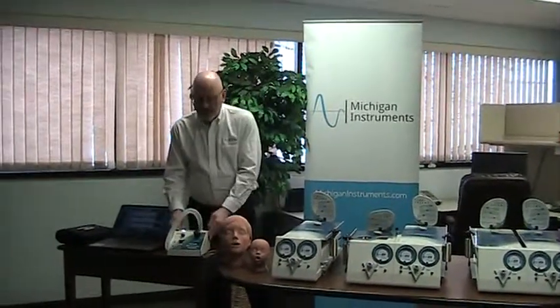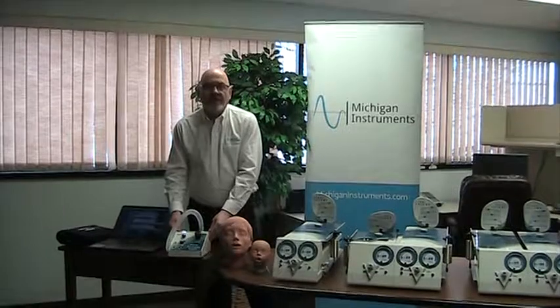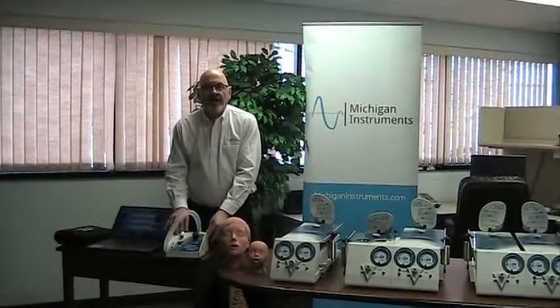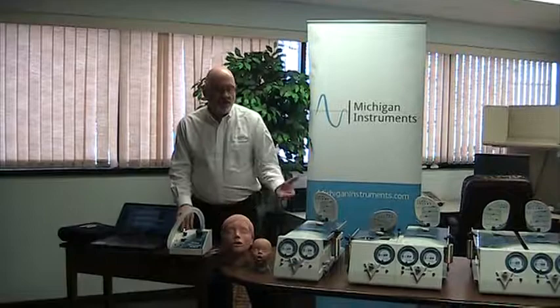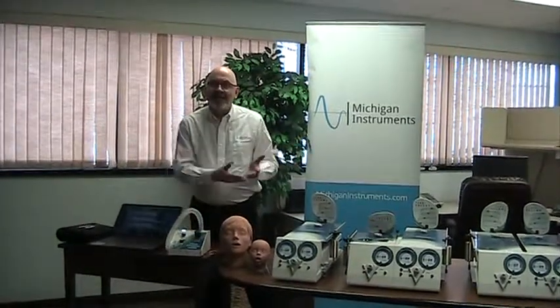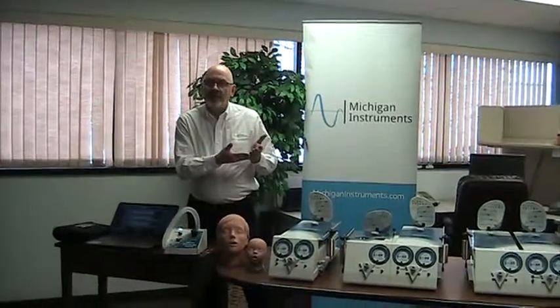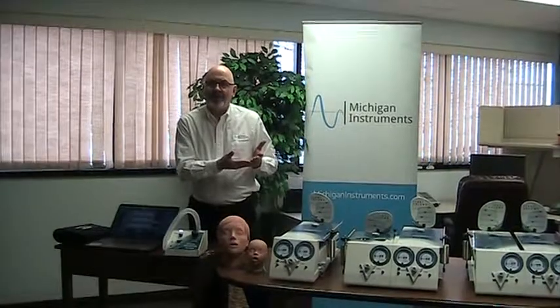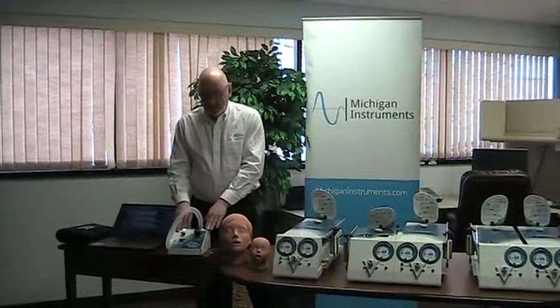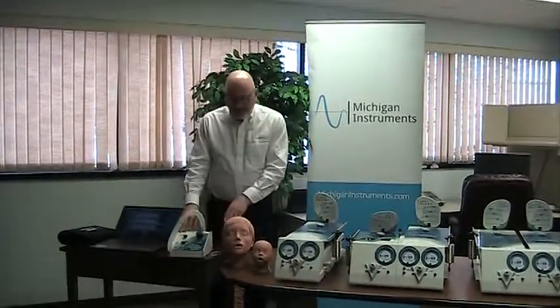Another accessory is the breath simulation module. This is a simple pneumatic ventilator, and it is used to drive one lung on a dual lung system and lift the other lung, creating a spontaneous breathing scenario. The breath simulation module is available for use with either of the two lung units.